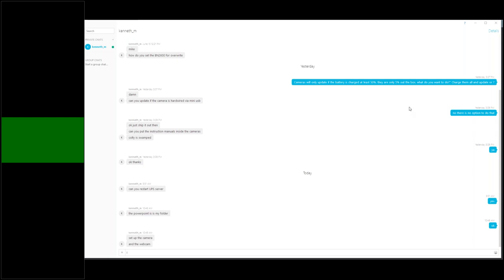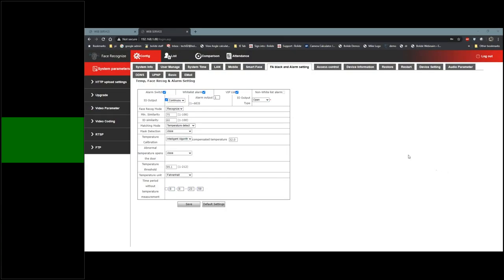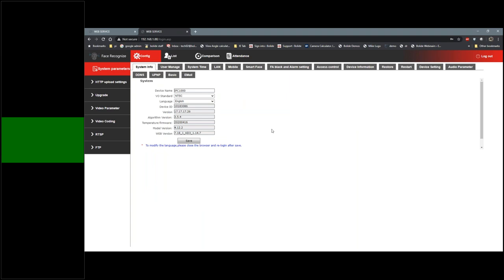There are two ways to interact with this camera: the web GUI and the VMS. Let's go to the web GUI first, because that's where you'll make most of your setting changes. When you buy this camera and want to access the settings, connect it to the network and treat it like an IP camera. Let me log out and show you the whole process. What IP address do I type? By default it comes out of the box at 192.168.1.88. You'll have to set your computer to this IP scheme.